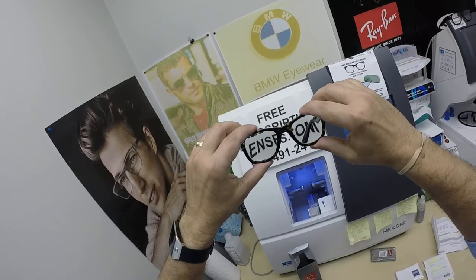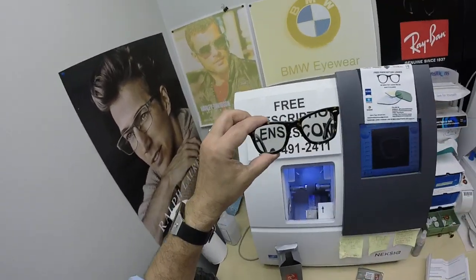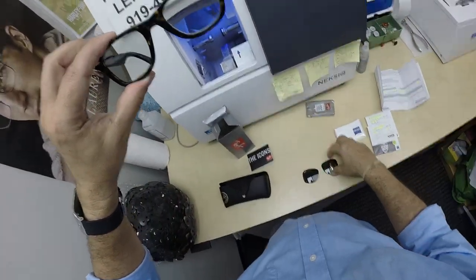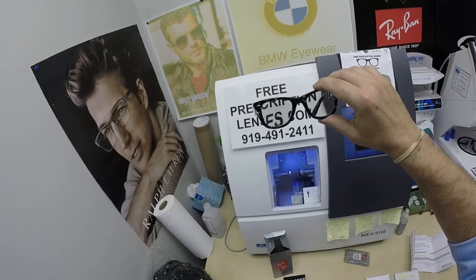Richard in Pacifica, California, thank you so much for your patience. Thank you for the purchase of the Ray-Ban, the classic original Wayfarer. This is the geek chic look — this is what got me started: turning sunglasses into clear glasses, but then with photochromic lenses, having them look like the original ones. The oldest trick in the book, and eventually Ray-Ban caught on.